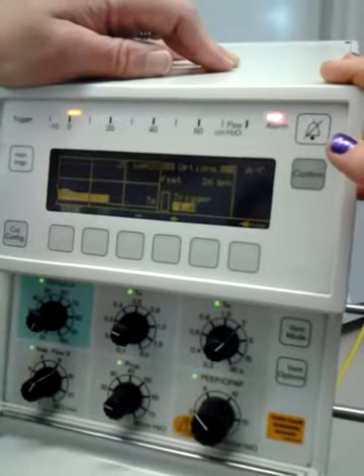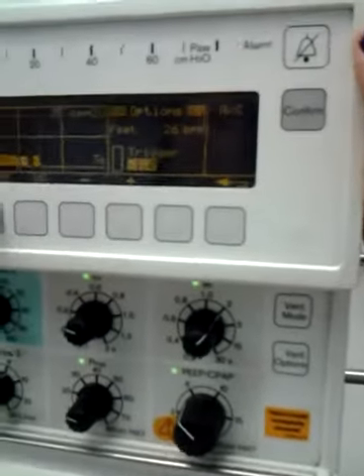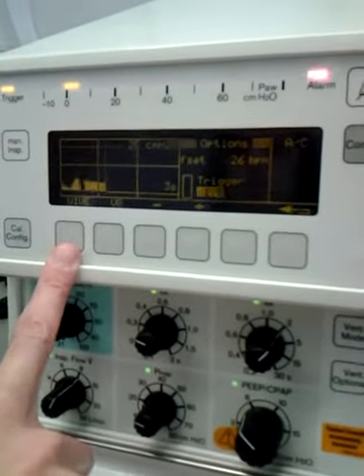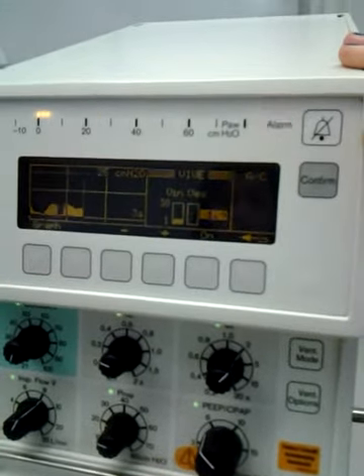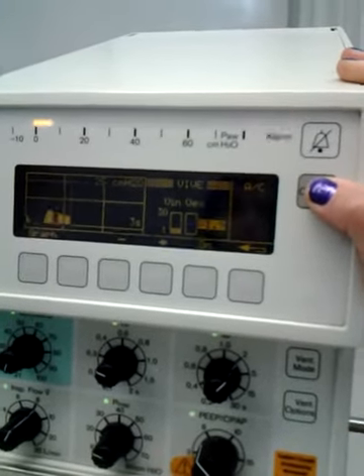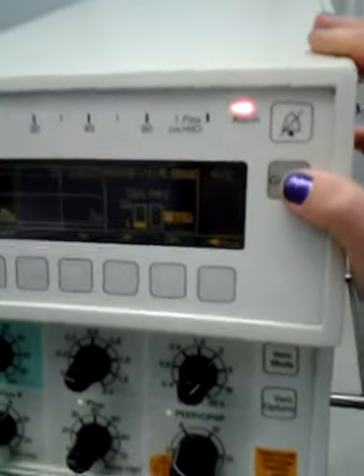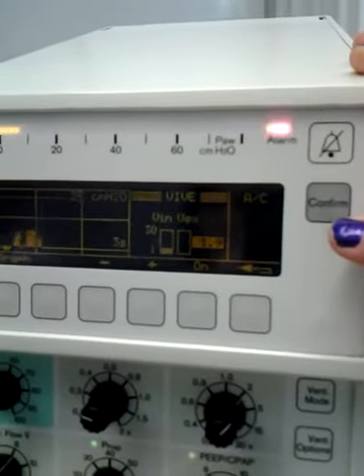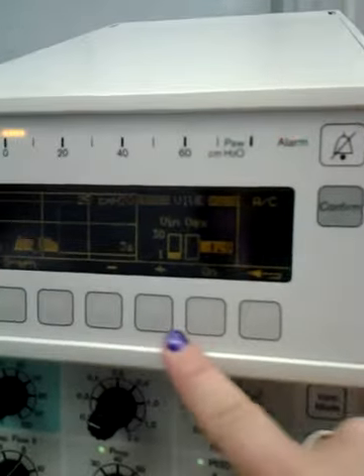See, now I'm just going to show here. What is that? That's your volume, inspiratory, expiratory? Go ahead, push it. Minute volume in, volume out. That's flow. The V dot is flow. So that's how much flows in. And it's not picking up because we're on AC. You have to set it.